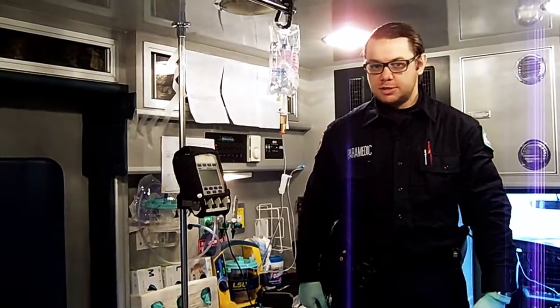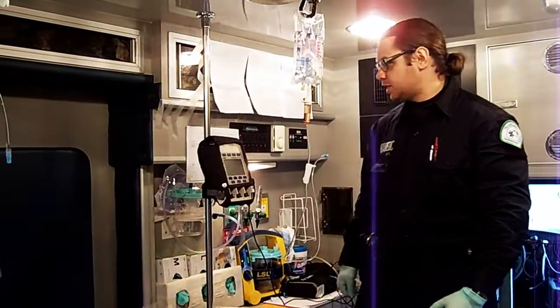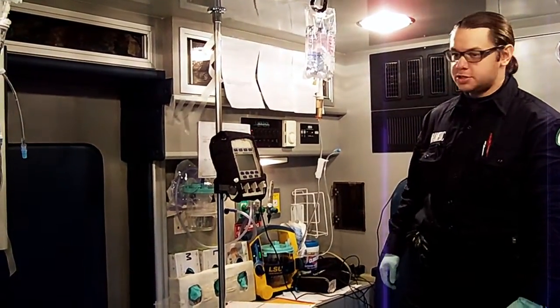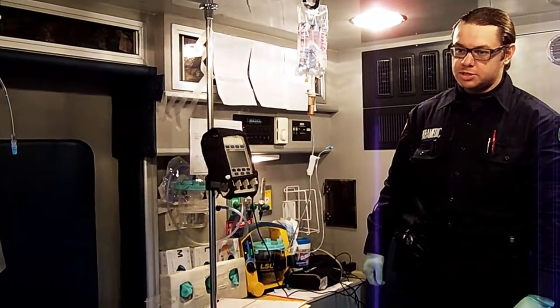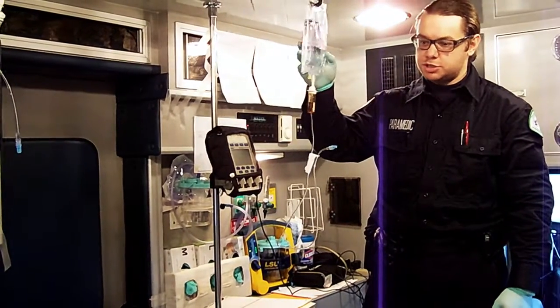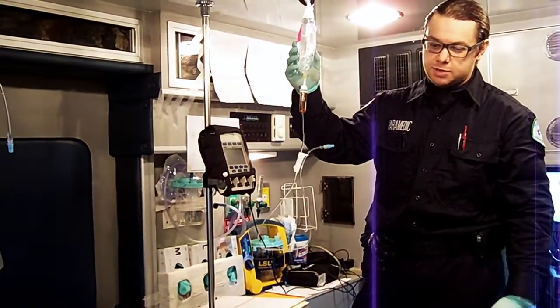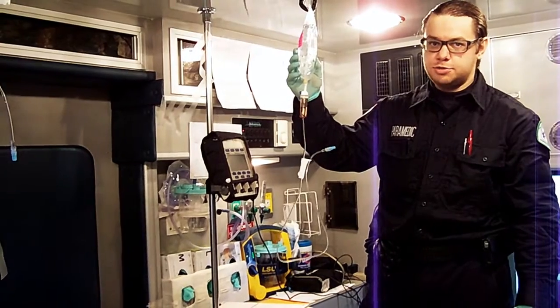My name is Nikolai Youssepov. Today I'm going to talk to you about IV infusion pumps. In this case we're going to be using MedSystem 3, which is built by Alaris CareFusion. I want to start off this presentation with really basic pump setup — how to set up a basic infusion pump — and then we're going to go into central lines and vasopressor medications and how to use more advanced stuff.